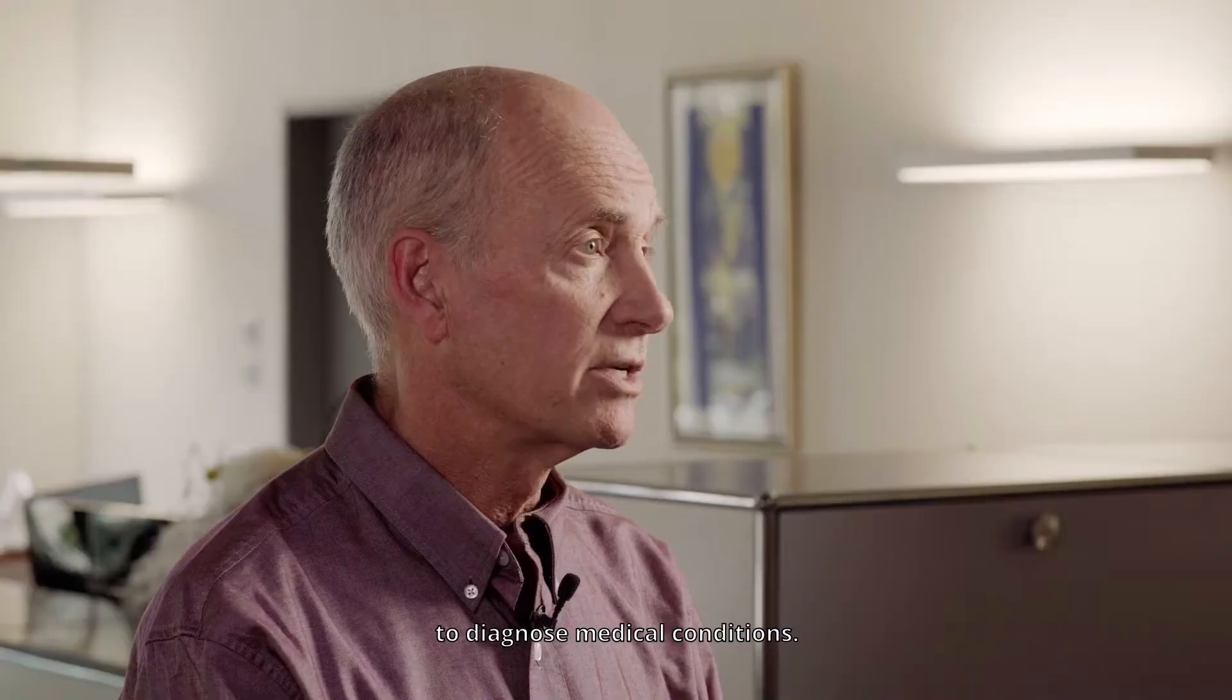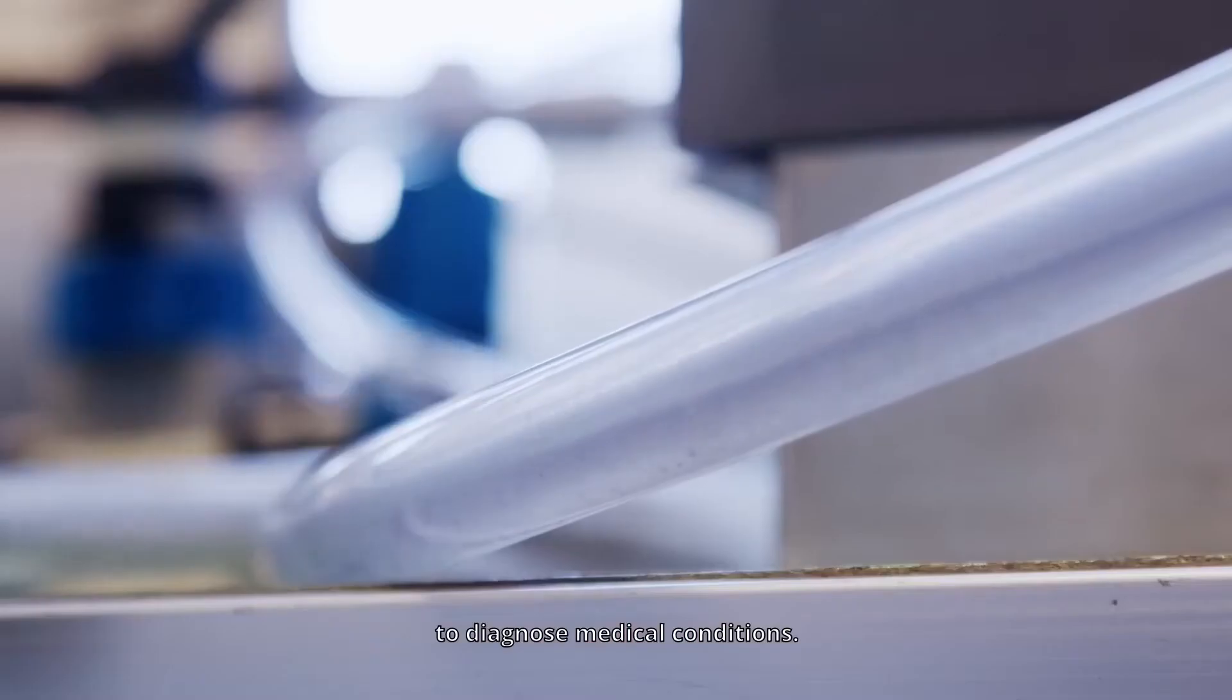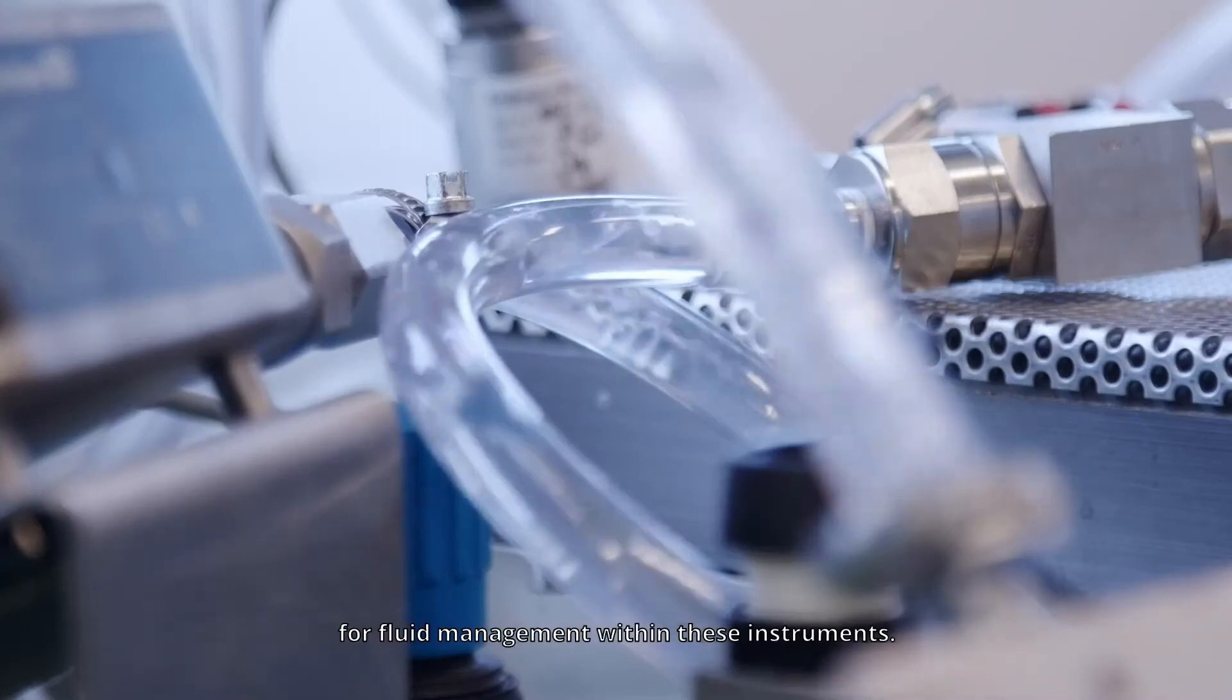In vitro diagnostics instruments use assays and reagents to diagnose medical conditions. Diener precision pumps are the ideal choice for fluid management within these instruments.